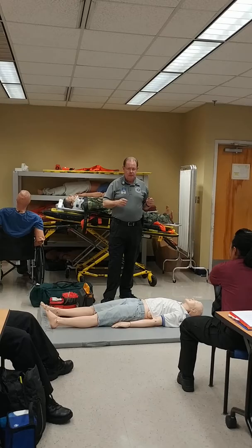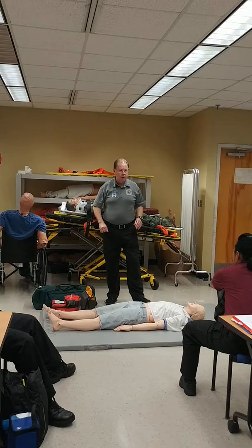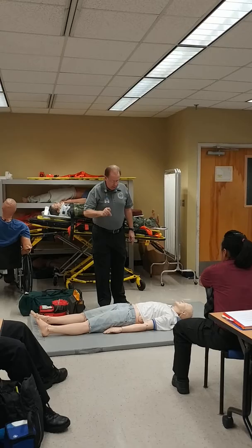Once the machine is charged, the AED person is responsible for clearing the patient. Like the baseball sign for safe — I lean around the patient and make sure it's safe. If I sweep my arms around the patient, I push everybody back and make sure they're out of the way. Then I go to push the button with my eyes on the patient, not on the button.